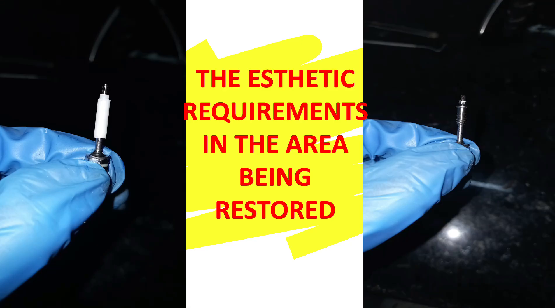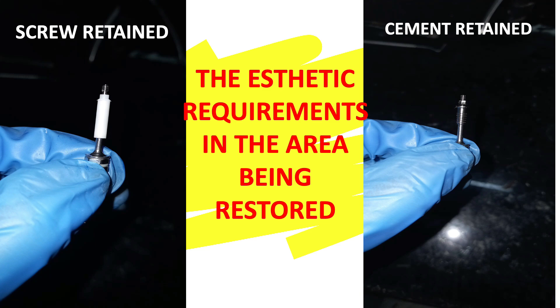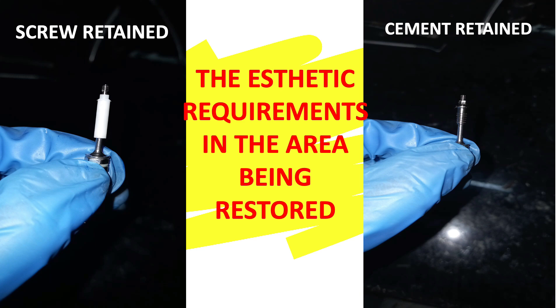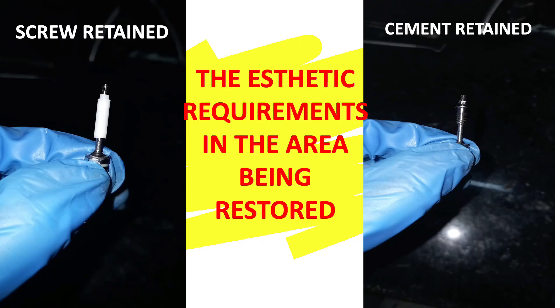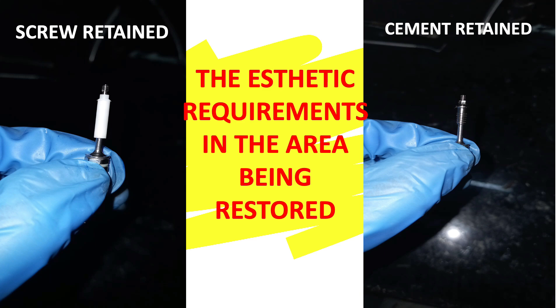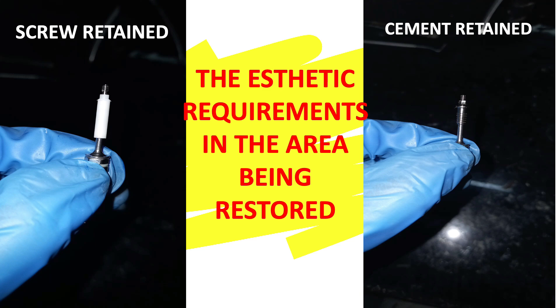You can also select the abutment based on aesthetic requirements of the area being restored. In the anterior region, a cement retained prosthesis or prefabricated abutment is preferred, because in a custom made abutment the screw access hole is visible, whereas in cement retained there is no screw hole visible. In the posterior region, either cement retained or screw retained prosthesis can be used. Aesthetically, prefabricated or cement retained prosthesis is more aesthetic than screw retained.